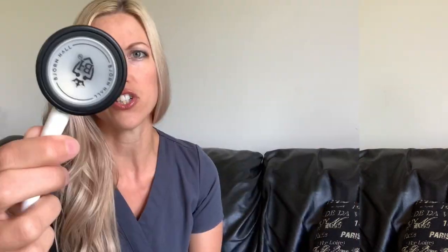I'll show you guys how it looks with scrubs. It's actually really lightweight compared to my Littman — most of the weight is in the diaphragm, and this diaphragm is just so much lighter. It says 'Bjorn Hall Stockholm Series' on the bell side. It's so beautiful — you can just see the attention to detail and the craftsmanship. It's very eye-catching and aesthetically pleasing, and it just has the look of a quality stethoscope.